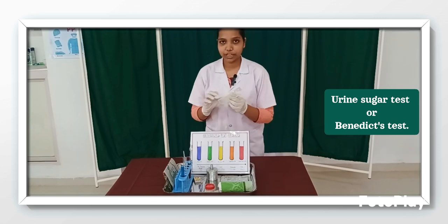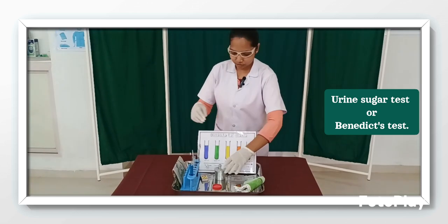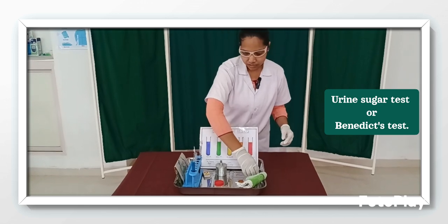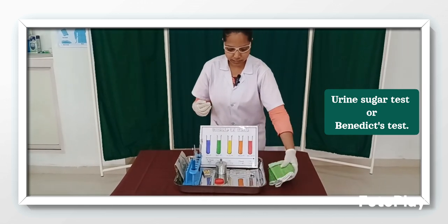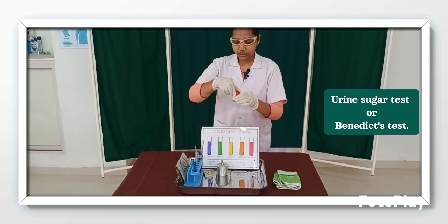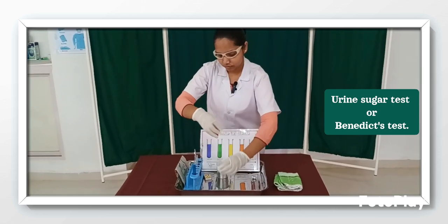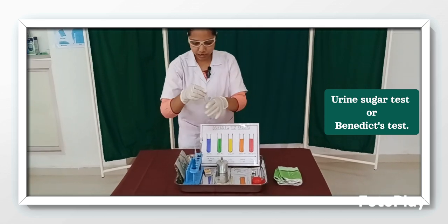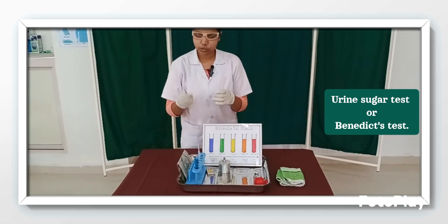Then I am going to wear the goggles to protect my eyes. First I am going to open the lid of the spirit lamp, and I am going to place the towel aside to make more space, and I am going to open the lid of the specimen. Here I am going to take the test tube and hold it with the test tube holder.